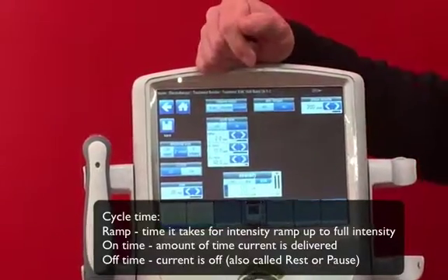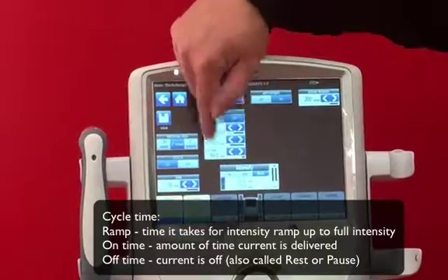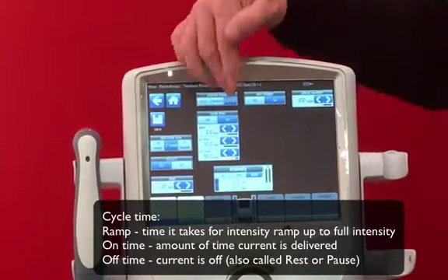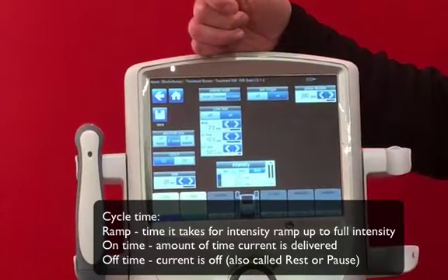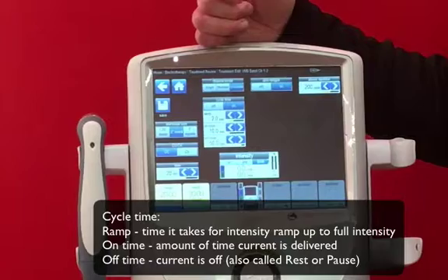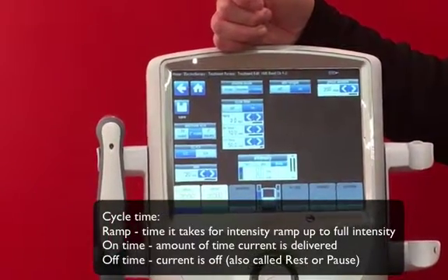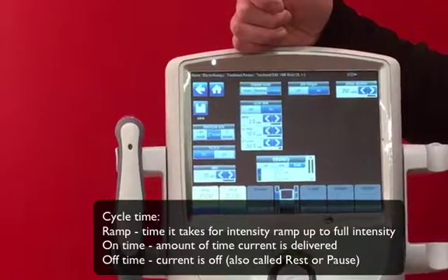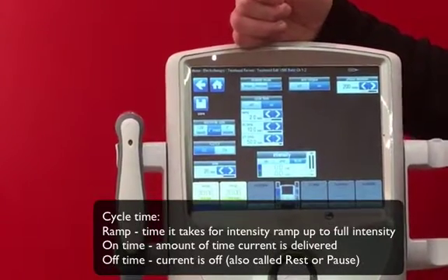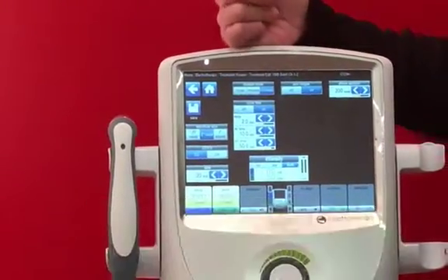We also have on time and off time. On time is the length of time the stimulation is live, and off time is the rest period. It defaults to a 10:50 ratio because that's classical for strength augmentation, but you can change it to have longer or shorter on-off times relative to the activities you're performing. For example, if you want a higher number of repetitions and aren't worried about fatigue, you can adjust that on-off ratio accordingly.